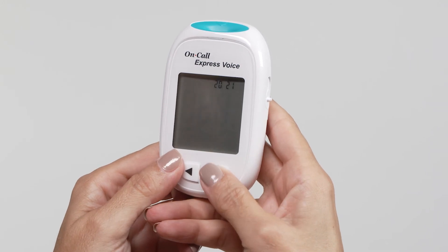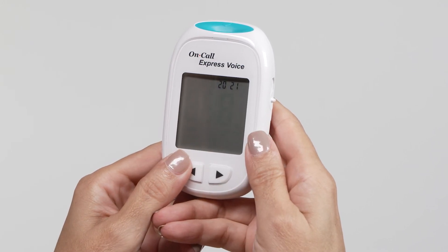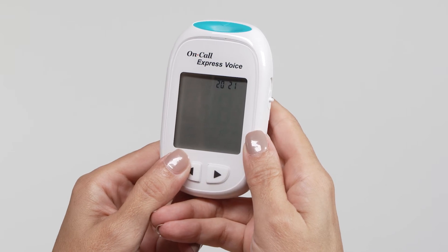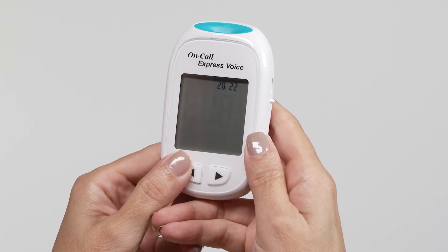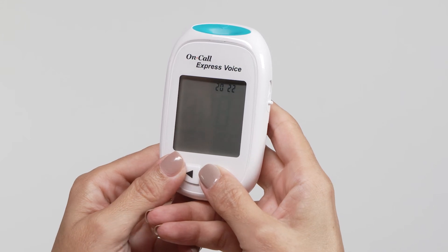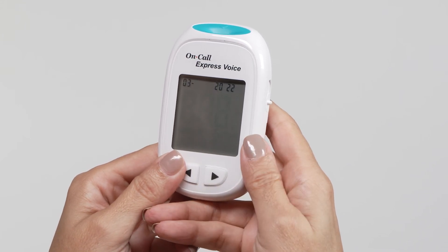Now you can start to set the year, month, and date. The year will appear at the top of the display. Press the left button to increase the year. Once you have selected the correct year, press the right button to save your choice and start setting the month.